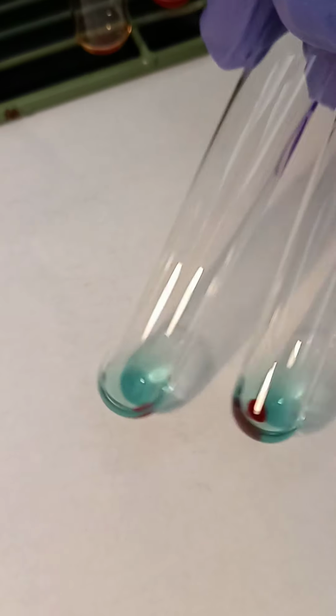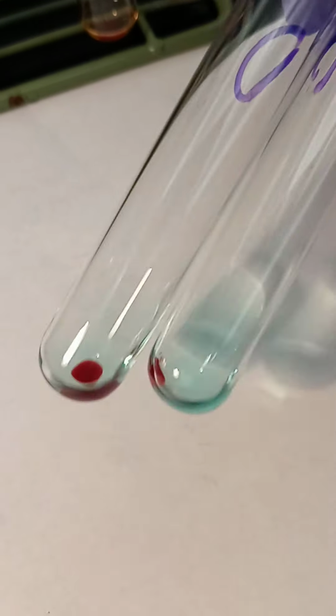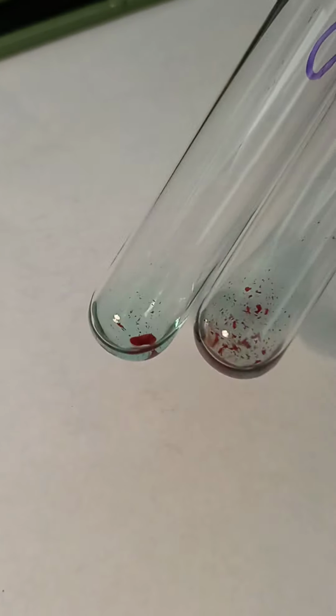Okay, and now any negative tube, we've got to add check cells to. So these are the check cells that I made. Okay, so we're going to do that. Okay, so now you'll go answer the questions about the D and D control tubes once check cells have been added.